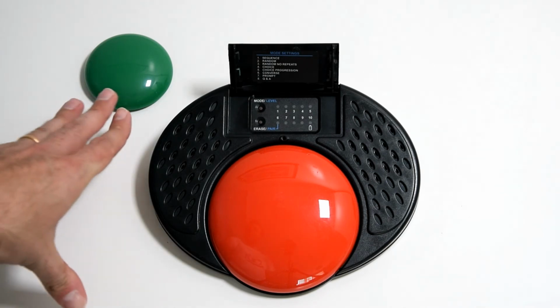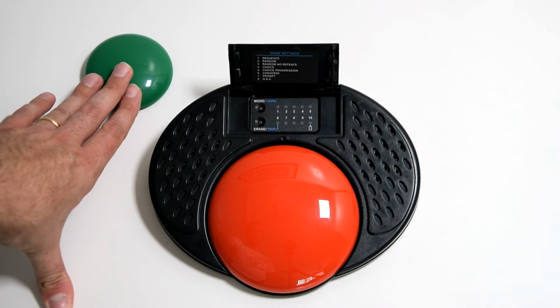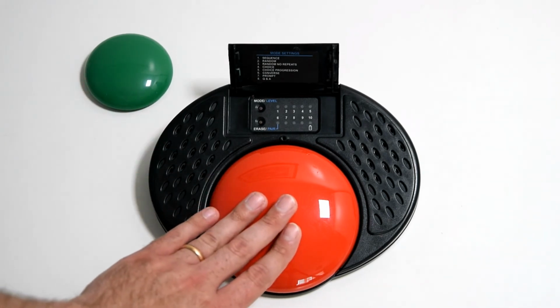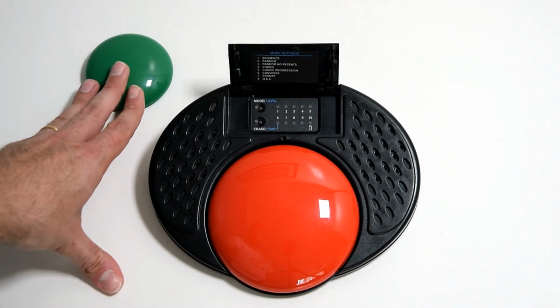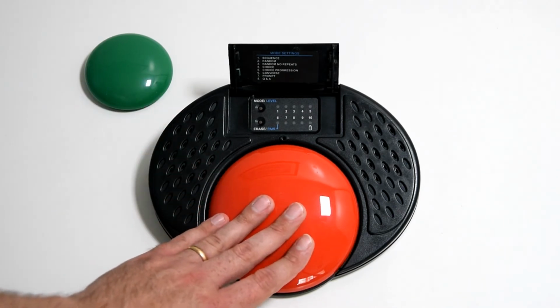So, Auditory Prompt allows the second button to be played back at a lower level. So, you'll hopefully be able to hear this. And then when you get to the correct one, you then press the main button and it does it a louder option for you. So as you see, what you've got as you go through, soup, bread, pizza, cheeseburger, ice cream, donuts. You found the right one, Donuts.